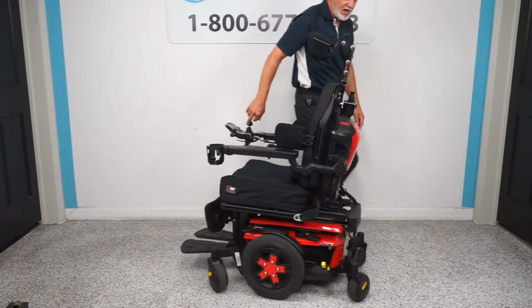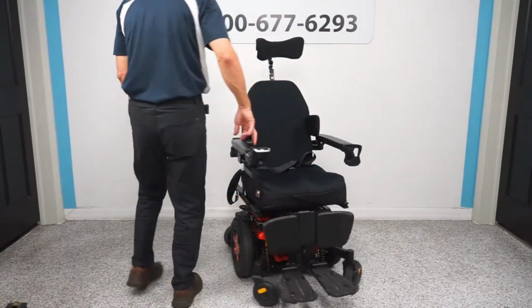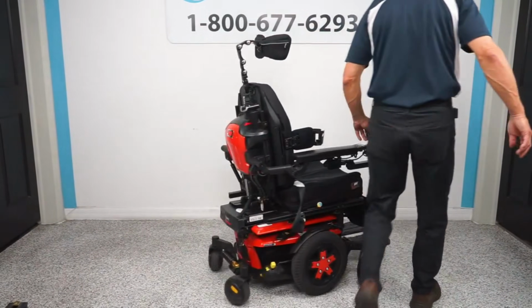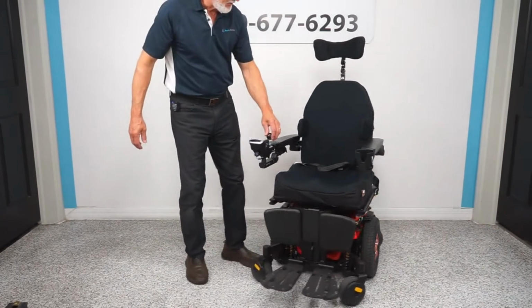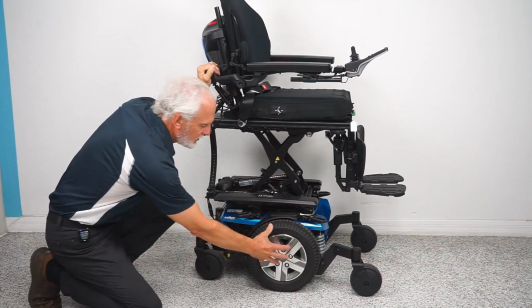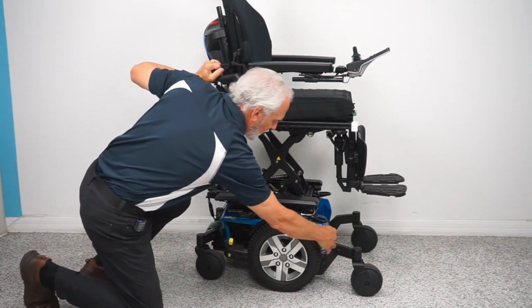It is going to have your drive wheel, which makes sense based on mid-wheel, directly in the center of the unit. So you are going to have caster wheels in the front and the rear that are going to swivel. But a mid-wheel drive configuration is going to create somewhat of the most stability for a person because you're sitting directly over the drive wheels, and also is going to have the tightest turning radius.